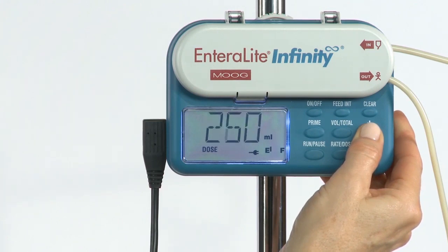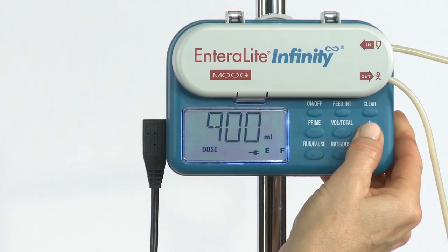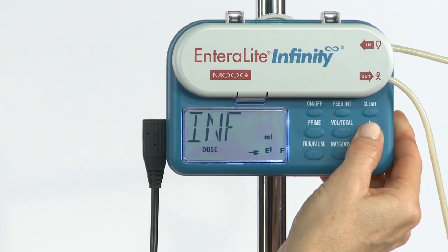After 3,000 milliliters is reached, the last setting displayed is INF — infinite dose.